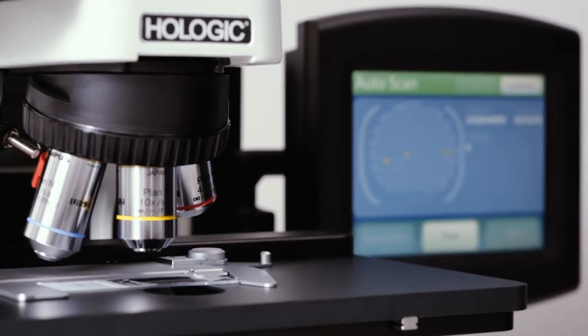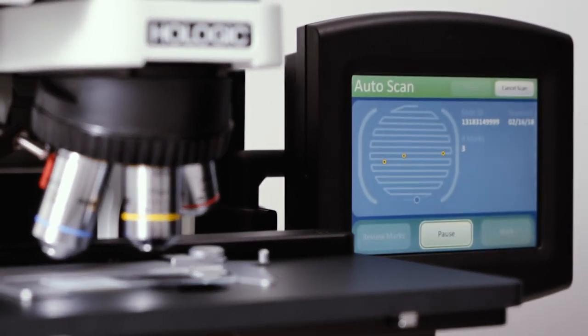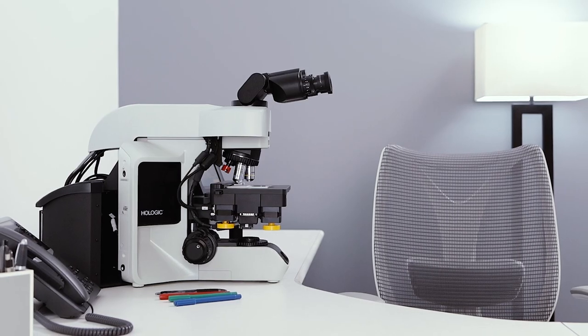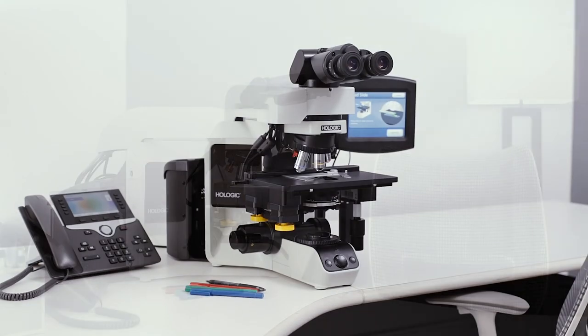The ThinPrep Integrated Imager combines the power of patented ThinPrep imaging with the convenience of dual slide review in a single device.